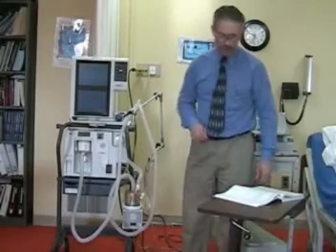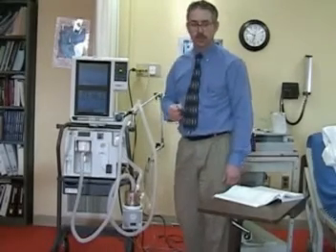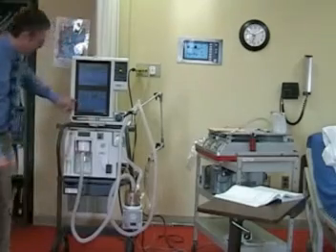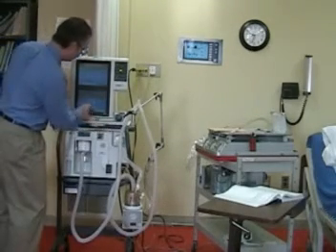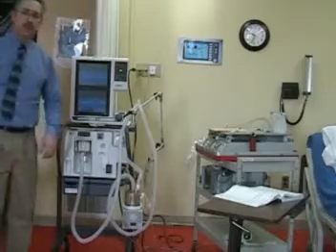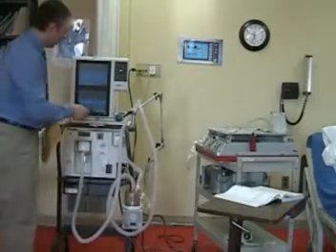and after you've assured that the ventilator is functioning correctly and you've done your tubing test, you'll go into the ventilator, set a new patient, ideal body weight, and then set your parameters, making sure that you're consistent with what the physician has ordered or what you've determined is best.